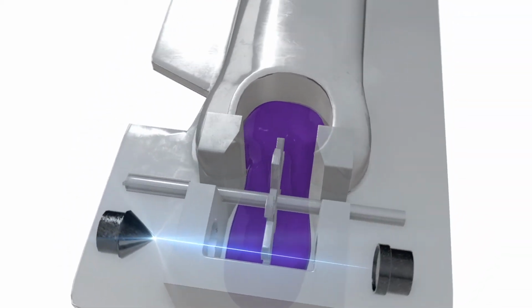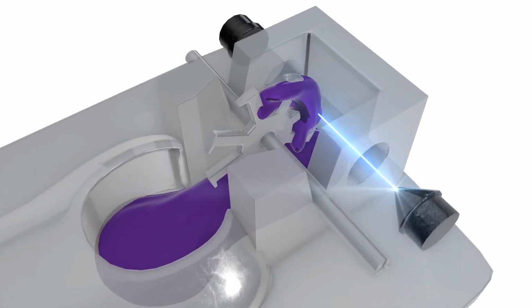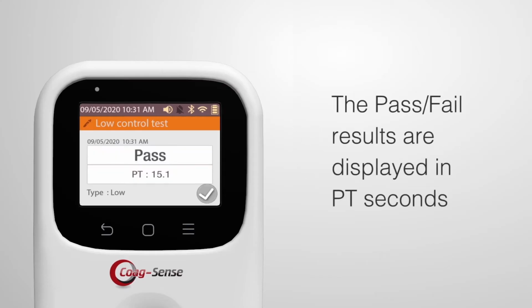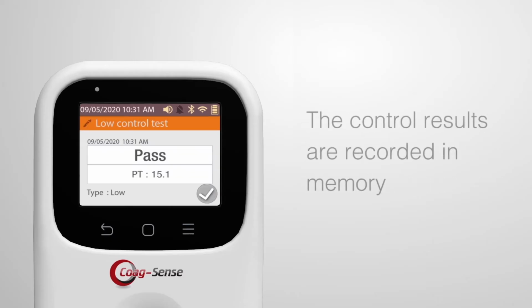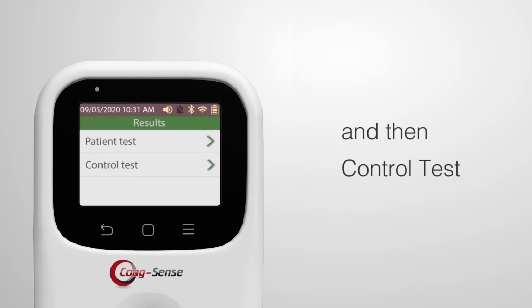When the control activation solution is properly applied and detected, the flashing green light will turn off and the meter displays "Testing, please wait." When testing is complete, the pass-fail results are displayed in PT seconds. Same steps can be followed for either control, high or low. The control result is recorded in memory and it can be found on the main menu using Results and then Control Test.